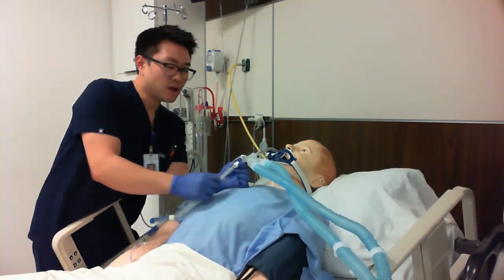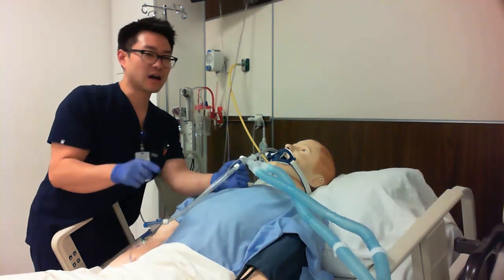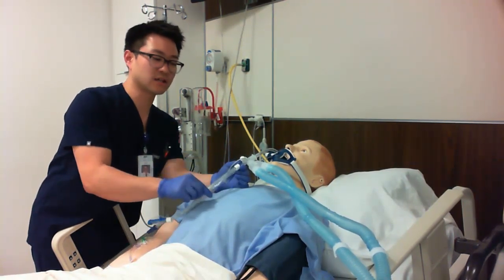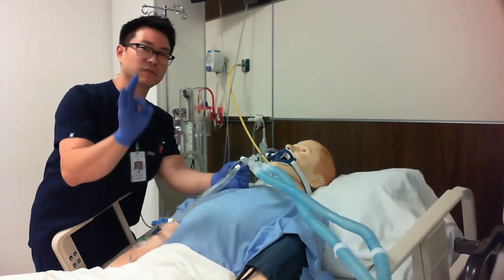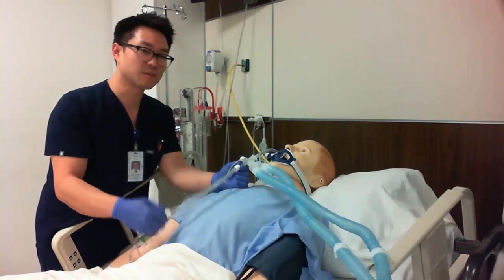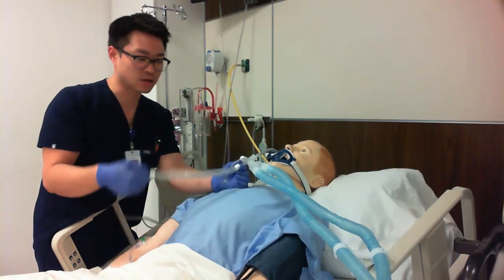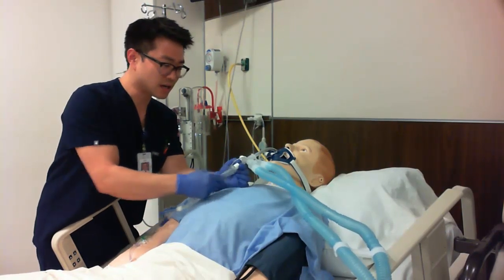So, a reminder for you guys, while you're reviewing those inline suctioning videos, I'd encourage you to go back and look. Were they suctioning with an inline suctioning case, or were they doing the one that was free-flowing, the one that did not have that over there? If they were doing that, most likely it was with a trach, but there is a slight difference. I want us to make sure that we notice the differences in these types of devices that we use. But go ahead and try and do it one more time.